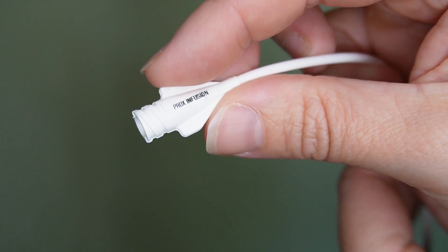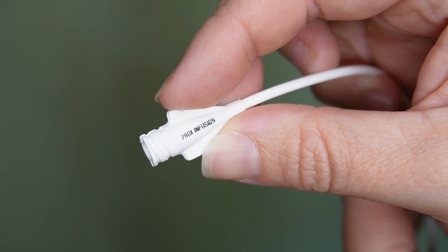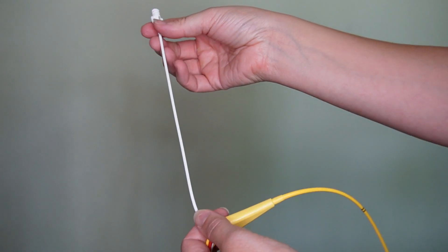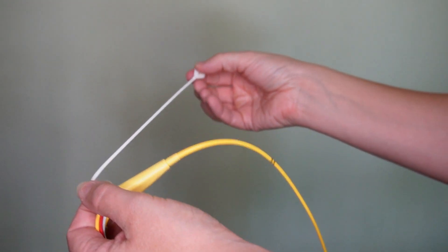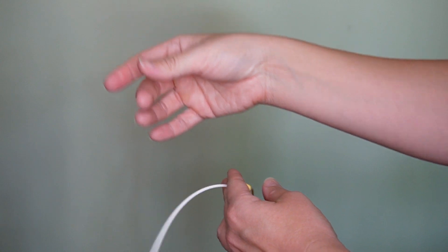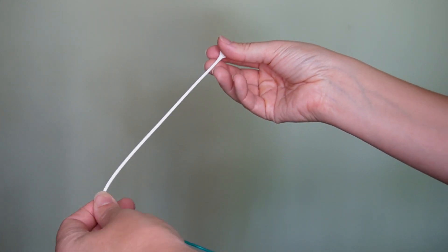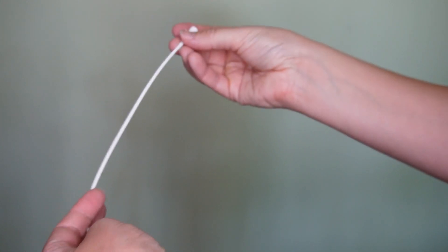The white lumen, also known as the VIP lumen, also terminates in the right atrium and has the sole purpose of being used for the administration of fluid or medications. That's it.